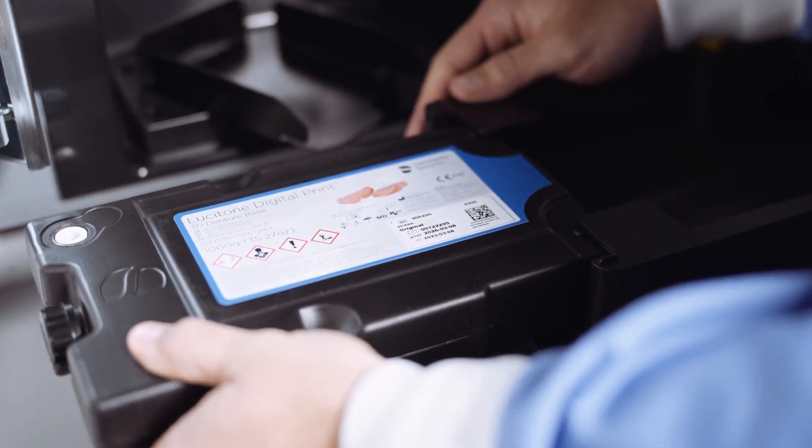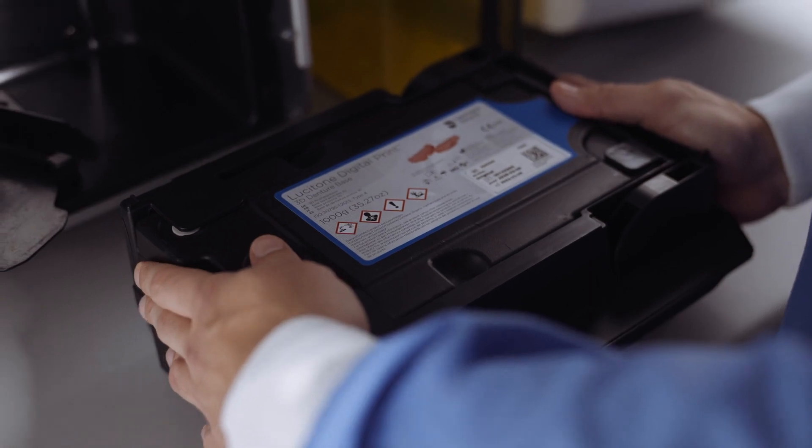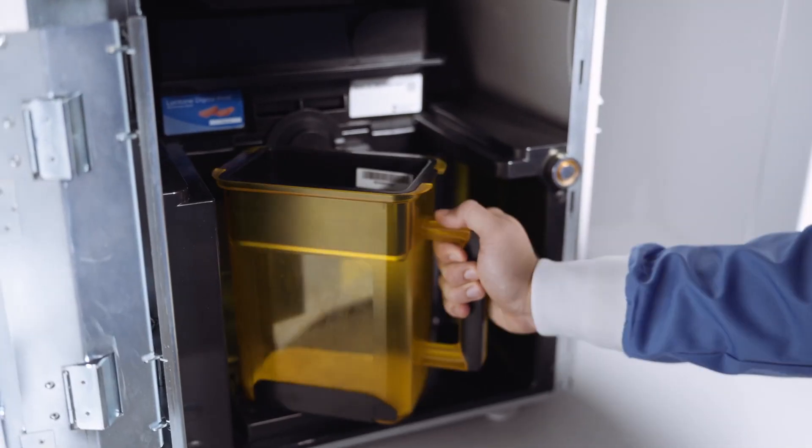The benefits of especially the Lucitone Digital Print Denture System for me is the strength of the product itself. The denture base reaching, exceeding what our regular standards are is amazing. The fact that it's a completely hands-off of the resin and we have the ability to cure everything in the same PPU box, wash, cure, the whole nine yards.